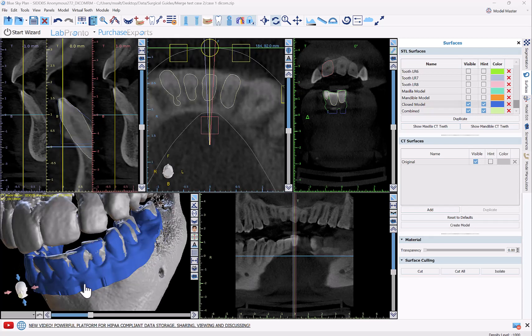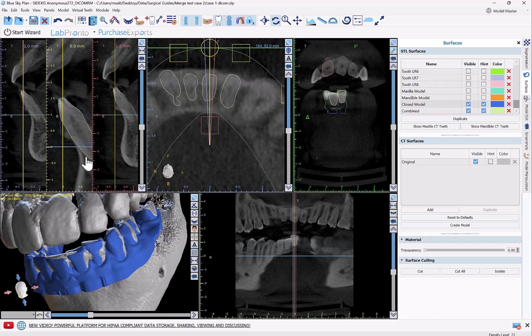Now if we take a look at our alignment, it looks really spot on — both in terms of the model-to-CT alignment and in terms of the CT tooth segmentation. We can see the outline of both the segmentation and the models right here, and how tightly and closely they are aligned to each other.